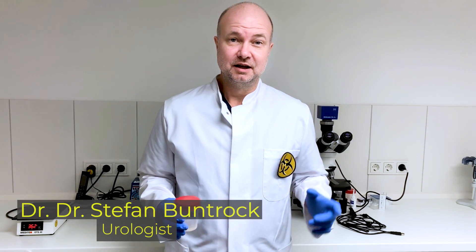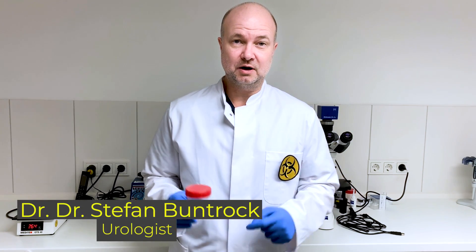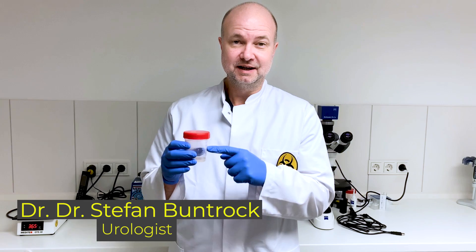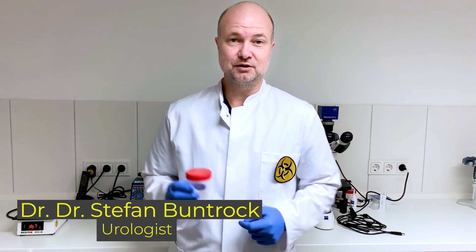Welcome to Euro Channel. Today I'm going to show you how to do a high quality semen analysis according to WHO. Let's do it!